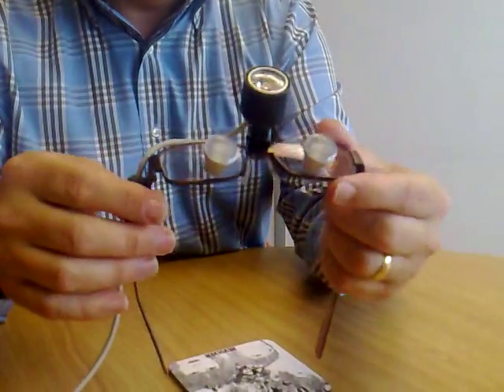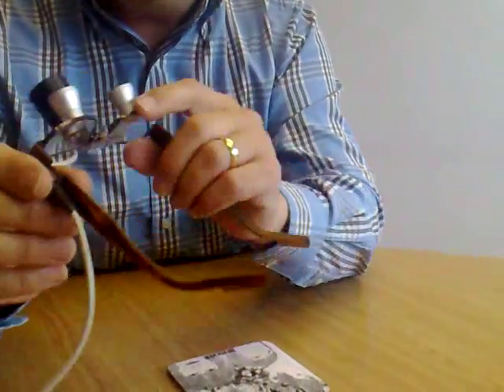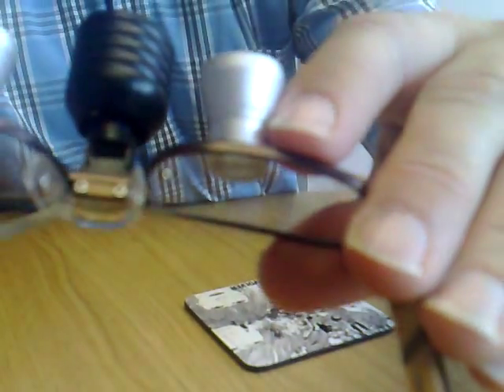Optident are a dentistry company. These particular ones, I think, are Carl Zeiss — which you will know from — I don't know if you can see that — but Carl Zeiss are the people that do lenses for the front cameras, or phone cameras, a lot of.